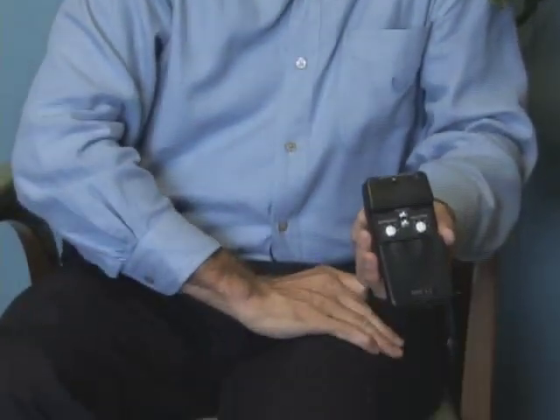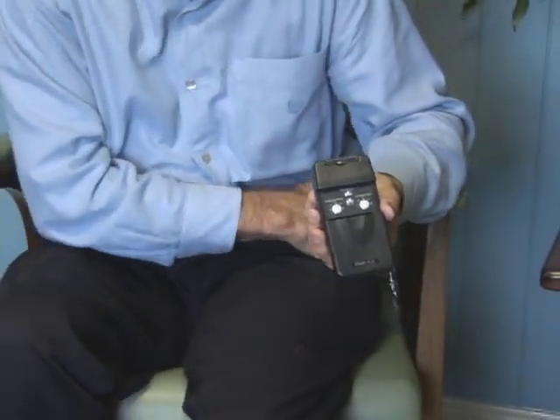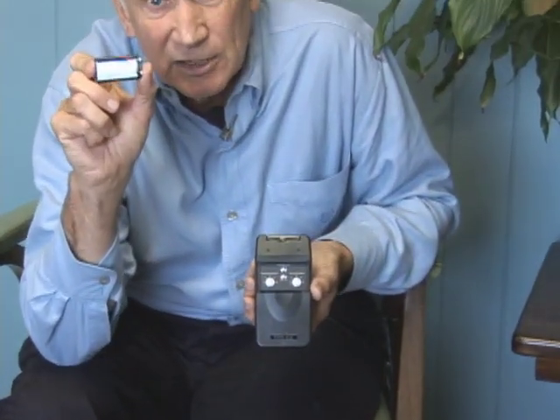Some of these units — for example those that use a 9-volt battery — don't have a lot of energy. So if you're stimulating the thighs or large muscle groups, there's probably not enough energy to effectively stimulate them. You also use muscle stimulators when somebody has a cast, trying to retard what we call atrophy — you put the unit on and turn it on several times a day to keep blood pumping and make the rehab time shorter. But you have to have enough power to effectively stimulate the motor nerves.